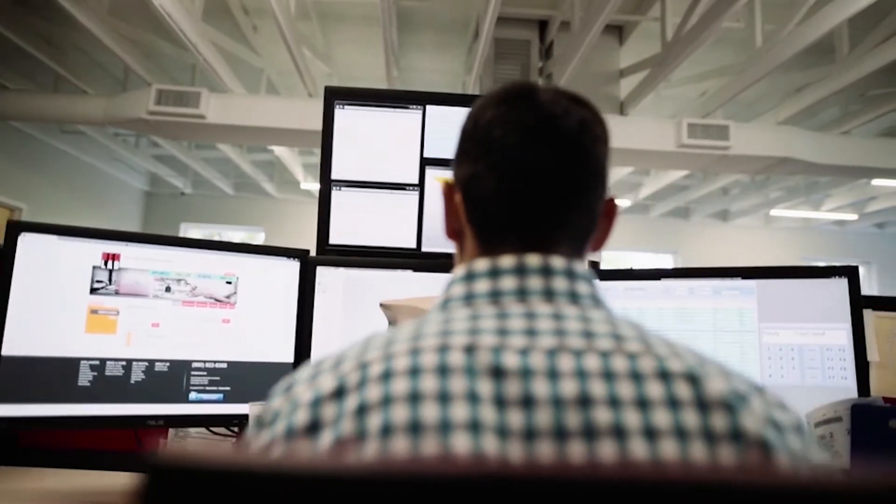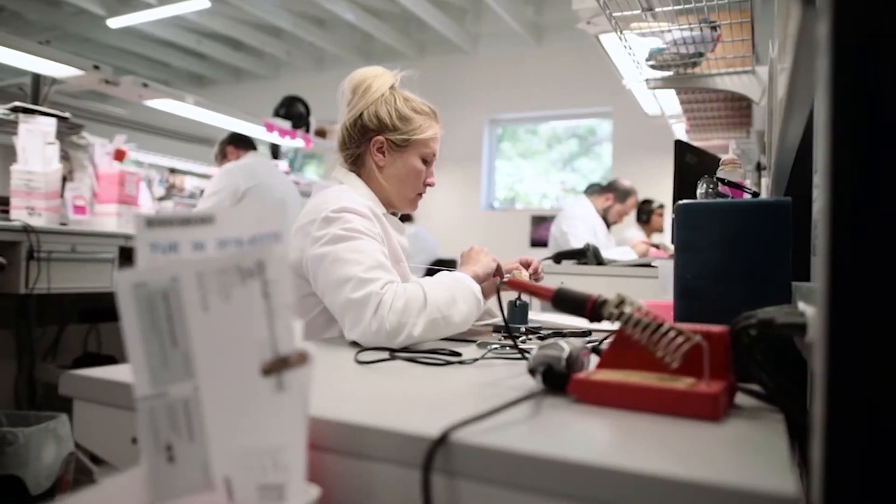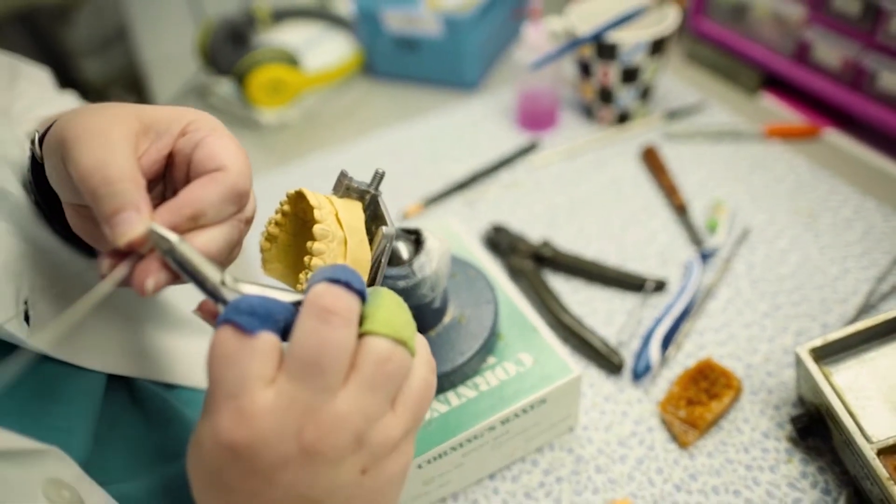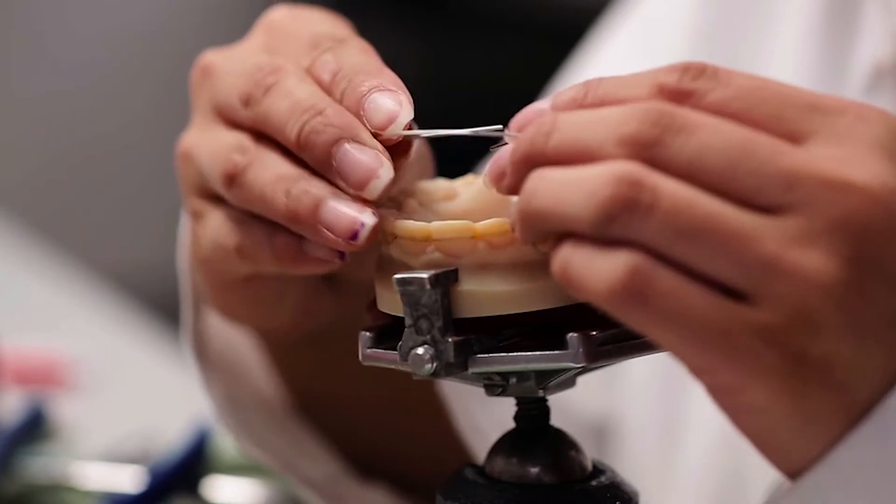With a 3D model, we can do all the work right on the model. We don't have to make a copy of the model. We don't have to carve the model. As soon as it's printed, it gets into my department and we put it right in production.